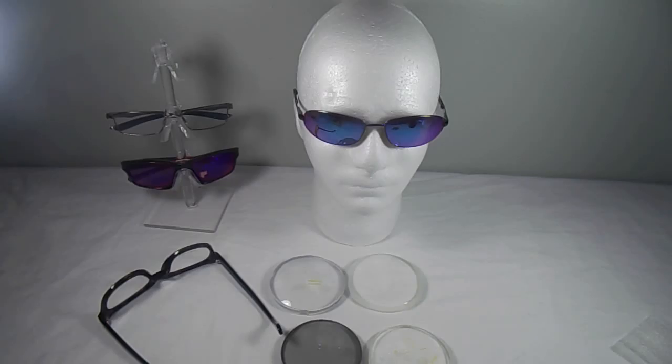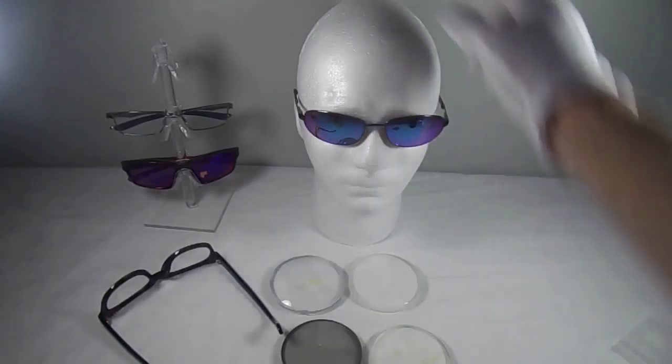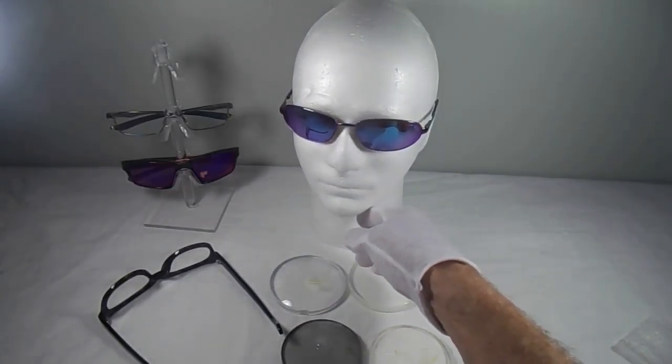So what is the best progressive lens on the market? That is probably one of the most difficult questions to answer and one of the easiest at the same time. It's difficult to answer because everyone's need is a little bit different. Even the same person, if they get a clear pair of everyday glasses and a pair of sunglasses, might require two different progressive types.